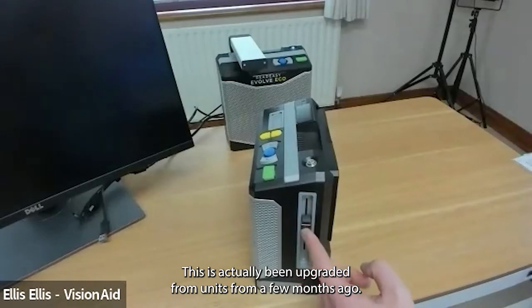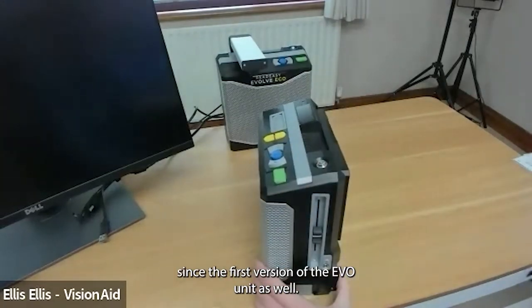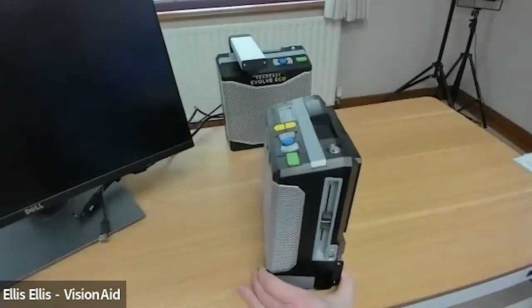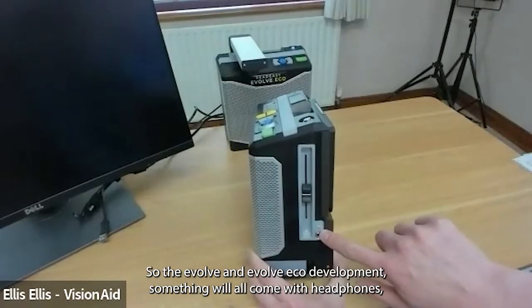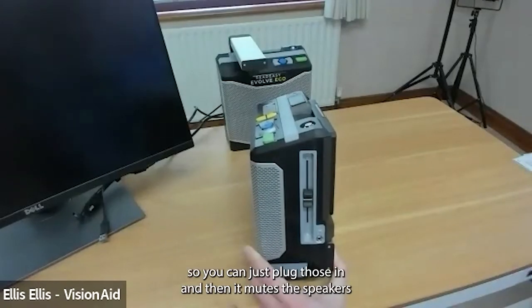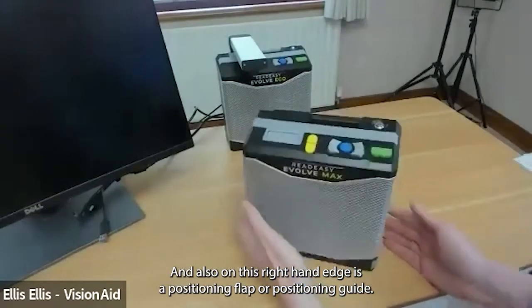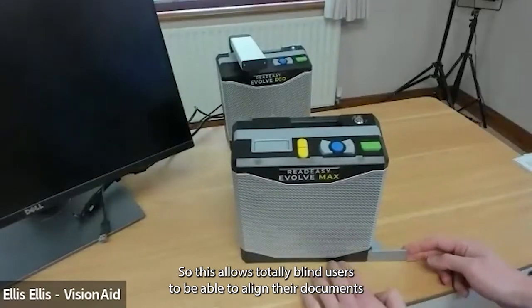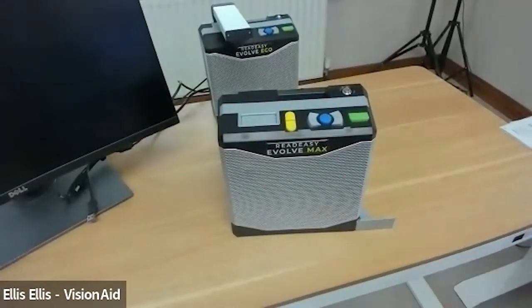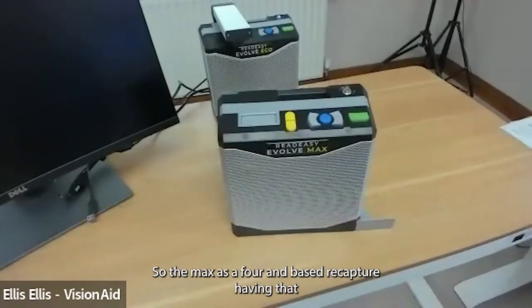There's a nice carry handle which lifts up from underneath so it's easy to grab and move the unit. The on/off button is in the back right-hand corner. On the side there's a really big chunky volume slider — this has been upgraded and has a really nice tactile resistance. The buttons have also been upgraded based on user feedback to be even more tactile than on the previous generation. On the left-hand edge there's a headphone jack, and on the right-hand edge a positioning flap allowing totally blind users to align A3 documents purely by touch.